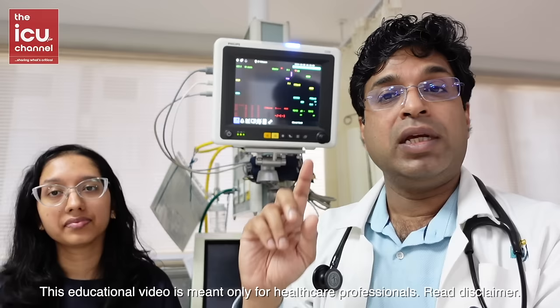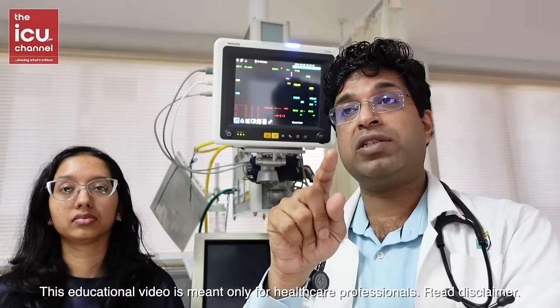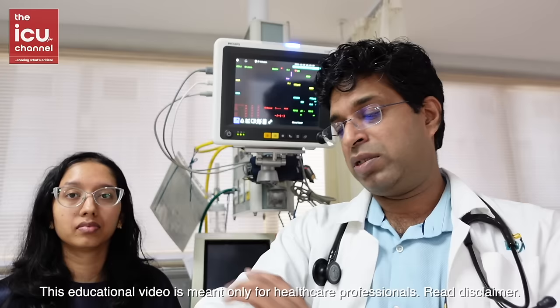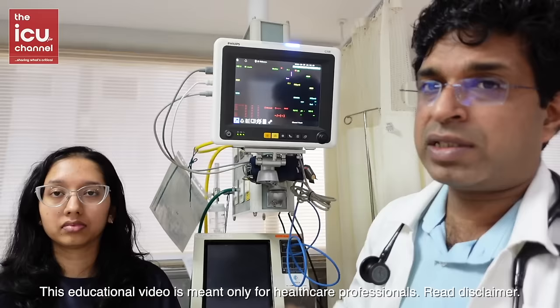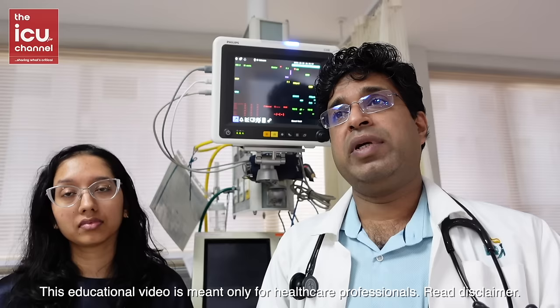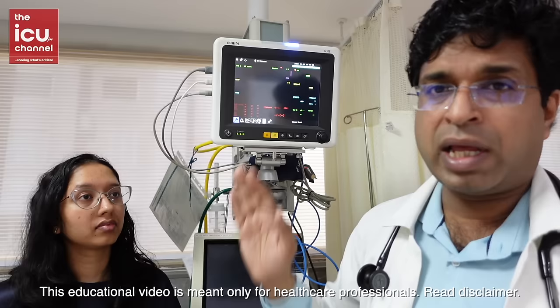If the cuff was set to inflate at 60-minute intervals and last inflated at 1 AM, the reading you see at 1:30 AM is from 1 AM, not the current time. Continuous inflation and deflation can also injure the patient's arm. For respiratory rate, don't rely solely on the monitor — always look at the patient directly, observing respiratory efforts, tachypnea, or nasal flaring, which the monitor may not capture.